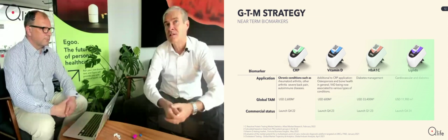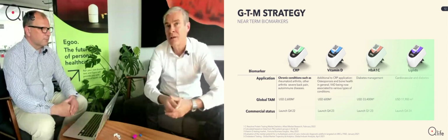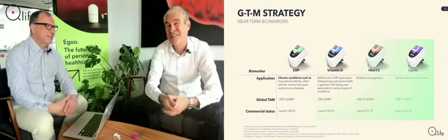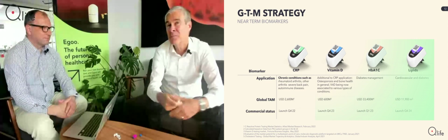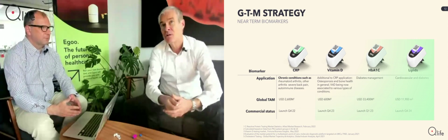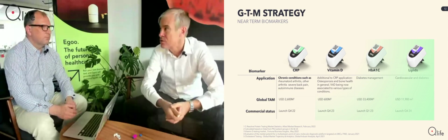And what we see is that people do not have that data, and typically they think they are doing better than they actually are. Yeah, of course. So it's interesting to get that data and try to avoid crossing the barrier. Yeah. Lipids, all your cholesterols, everybody knows that it's important to monitor.